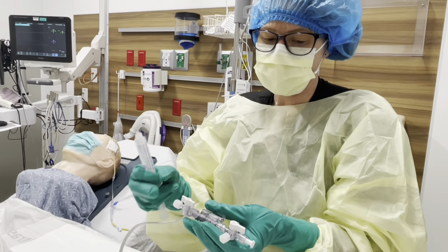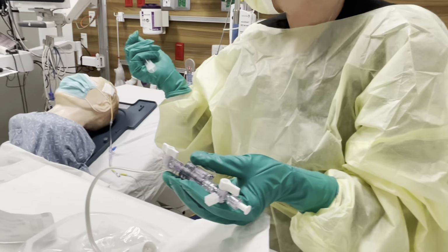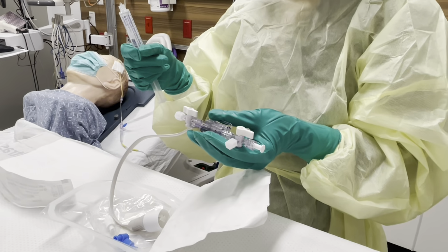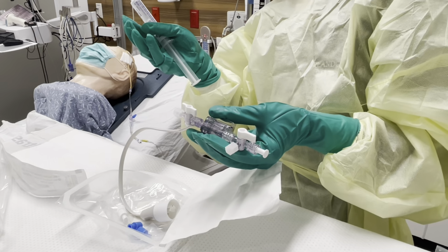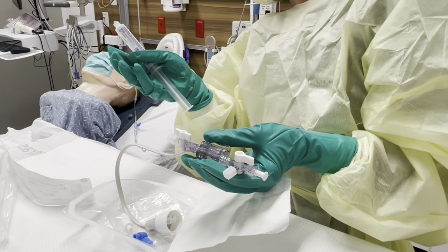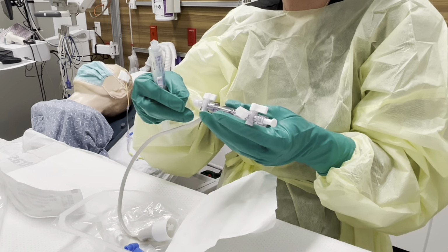So the way that this comes out, it has a couple of different valves on it here. Pretty much anything on your EVD, you're gonna want these nice blue caps. If it doesn't have a blue cap, it's just best to change it to a blue cap. I don't think that there's really anywhere on the device that it isn't good to have a blue cap. For some reason, these are vented caps. They need to come with non-vented caps.